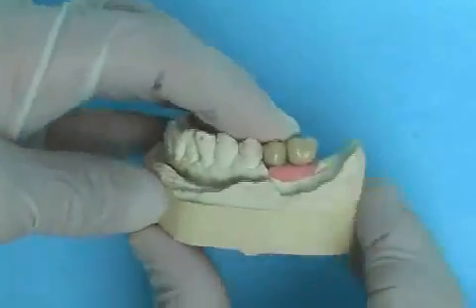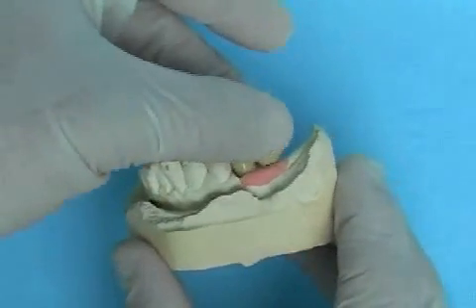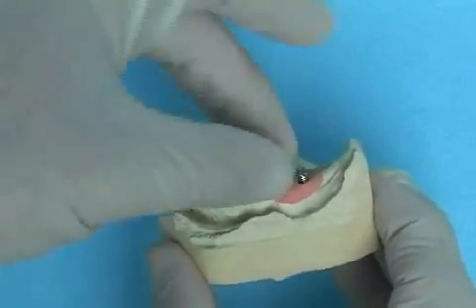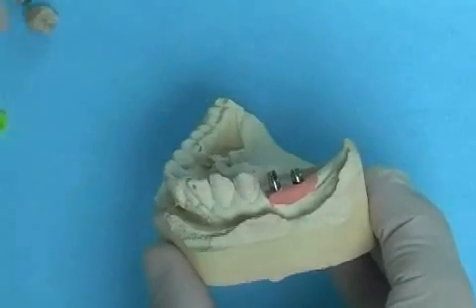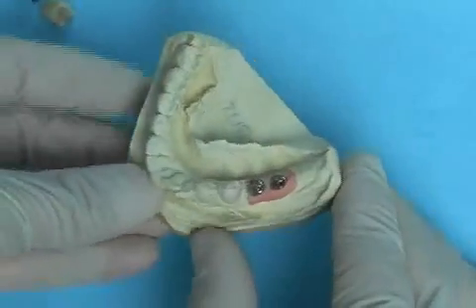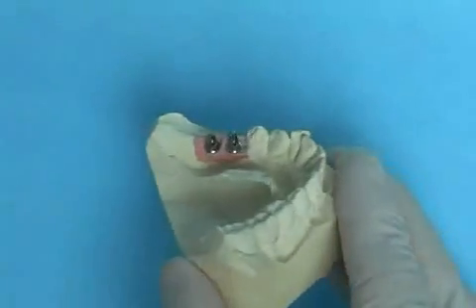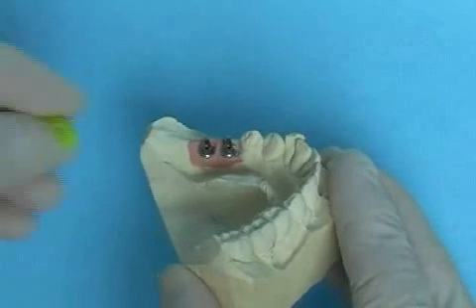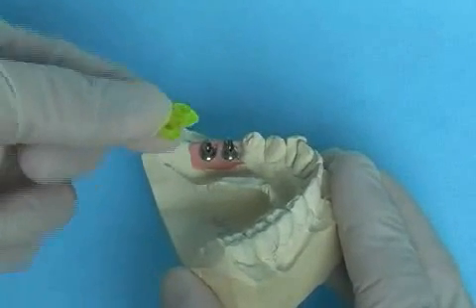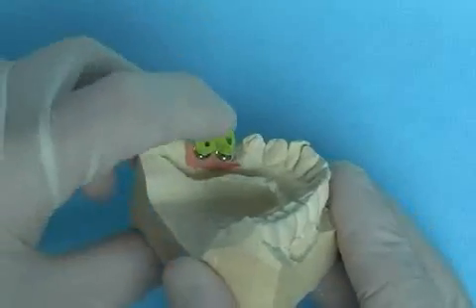Here you see a plaster model with two crowns on implants. Once the crowns have been removed, you can see the two abutments, which are made of titanium. When viewed from above, the screw connecting the abutment to the implant can be seen. The yellow positioning template is placed on the abutments and its proper fit is checked.